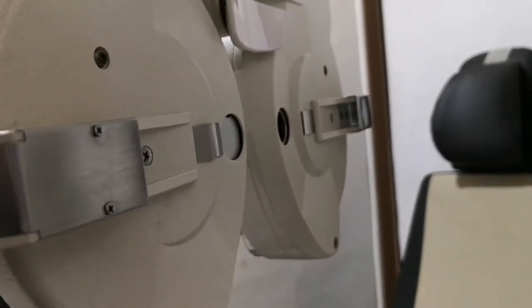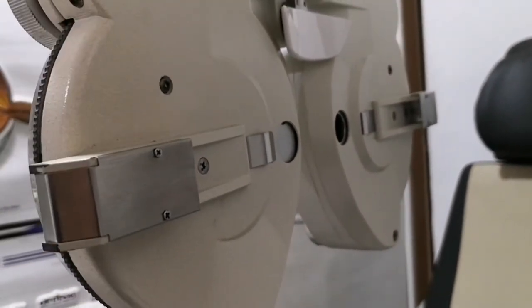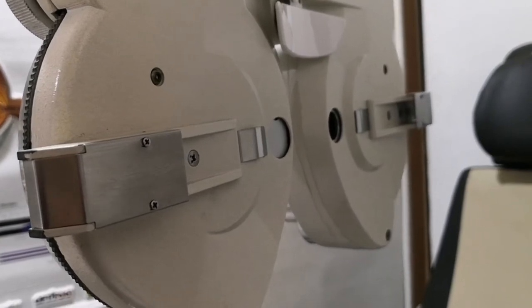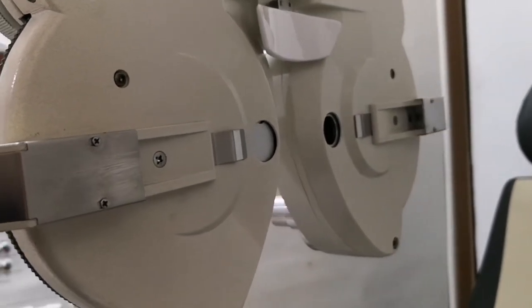And this is the back portion of the phoroptor. This is the place or the part that touches the patient's face.